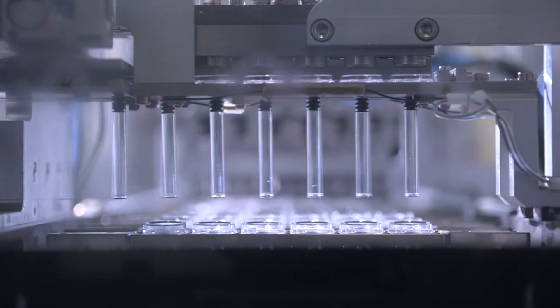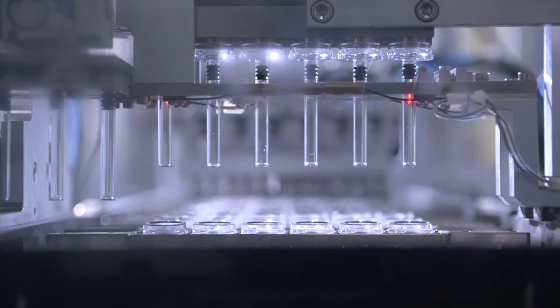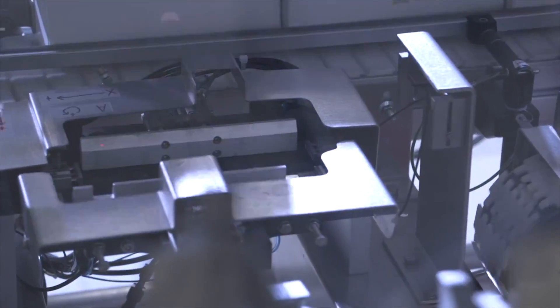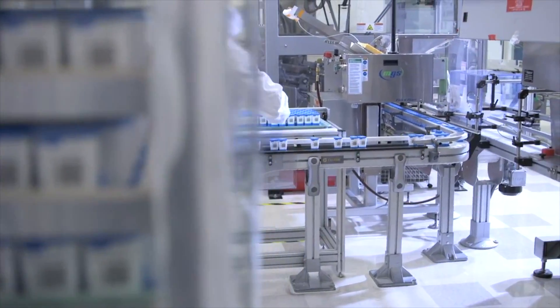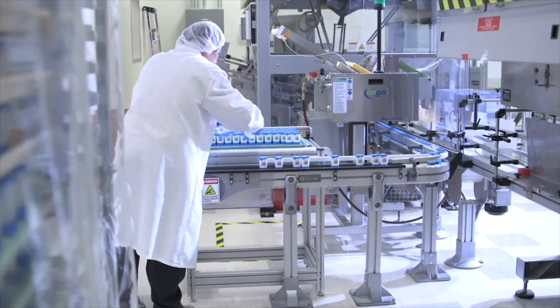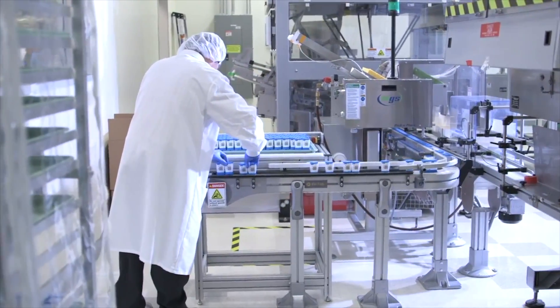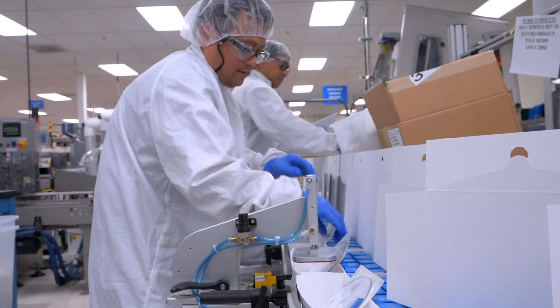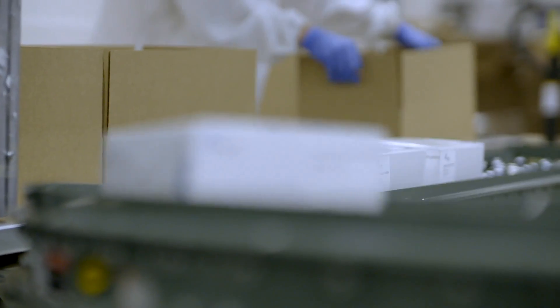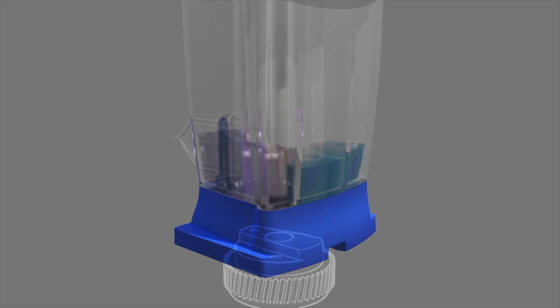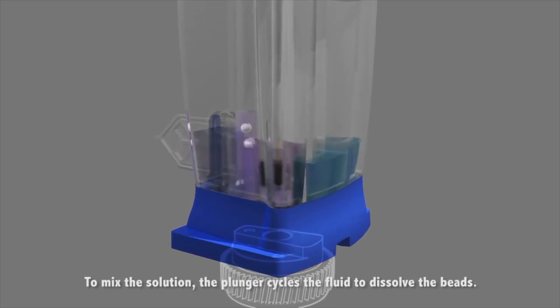That line carries out the process of putting liquid reagents into the cartridge, as well as inserting dry reagent components in the form of lyophilized beads that represent a stable component that, when mixed, initiates the amplification reaction inside the cartridge.